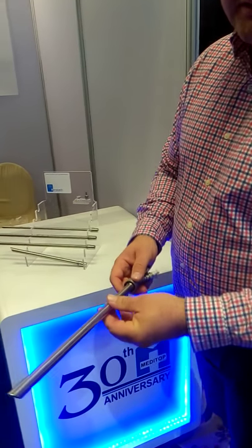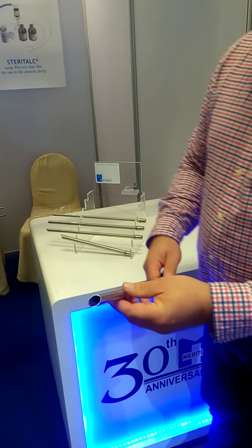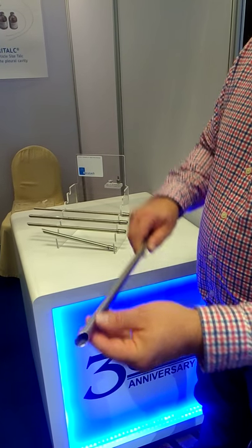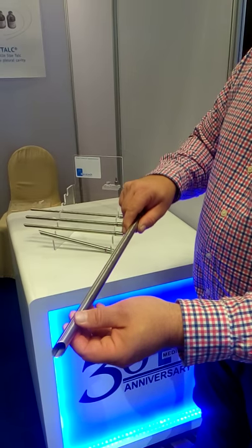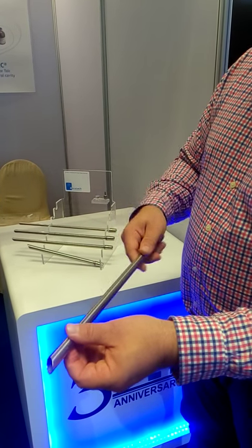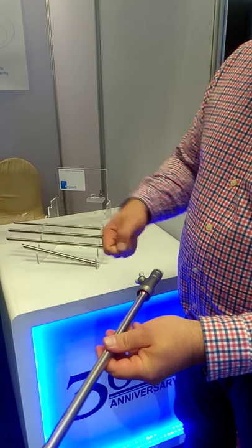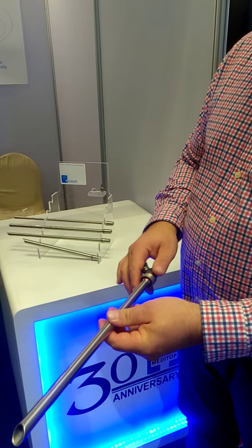What are the features of this new one? One of the new features is that we have a relatively sharp angle here with which you can carve off tumors. You easily shave parts off, and then via the suction system, you can remove those parts.